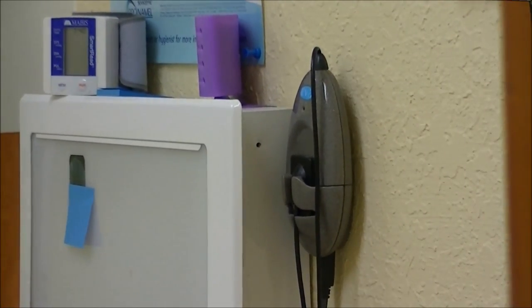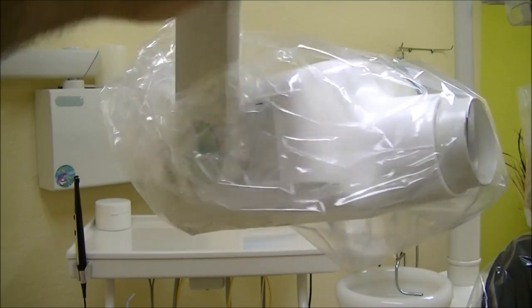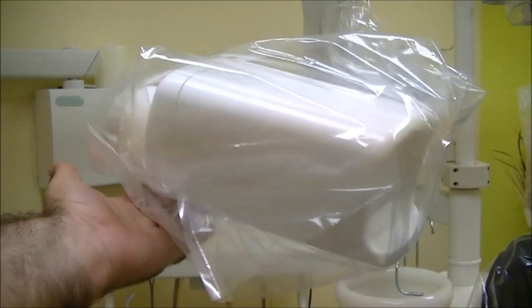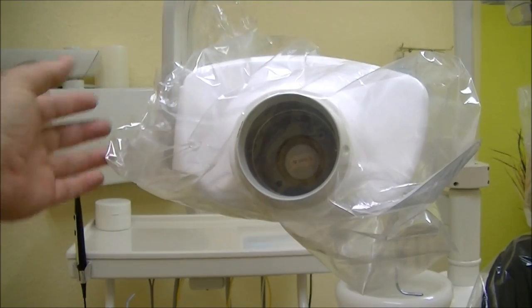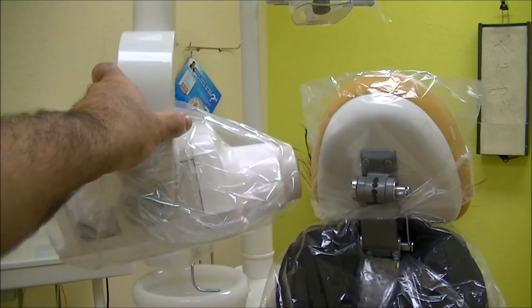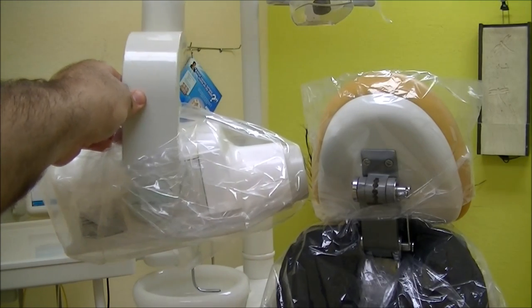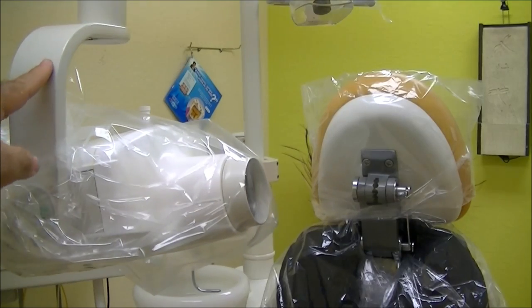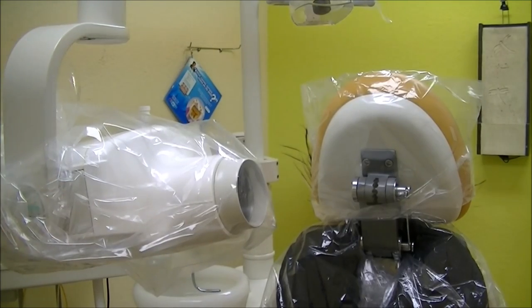This thing right here is an x-ray shooter. This device is very common — it's wrapped up for protection from germs and spit from people sneezing. Its job is to shoot a ray of x-ray into your mouth or face wherever they aim it. They'll normally adjust it really close and shoot you for about a half second for the film to take the exposure. With digital x-ray, all that has changed — it's a much quicker shot and way safer.